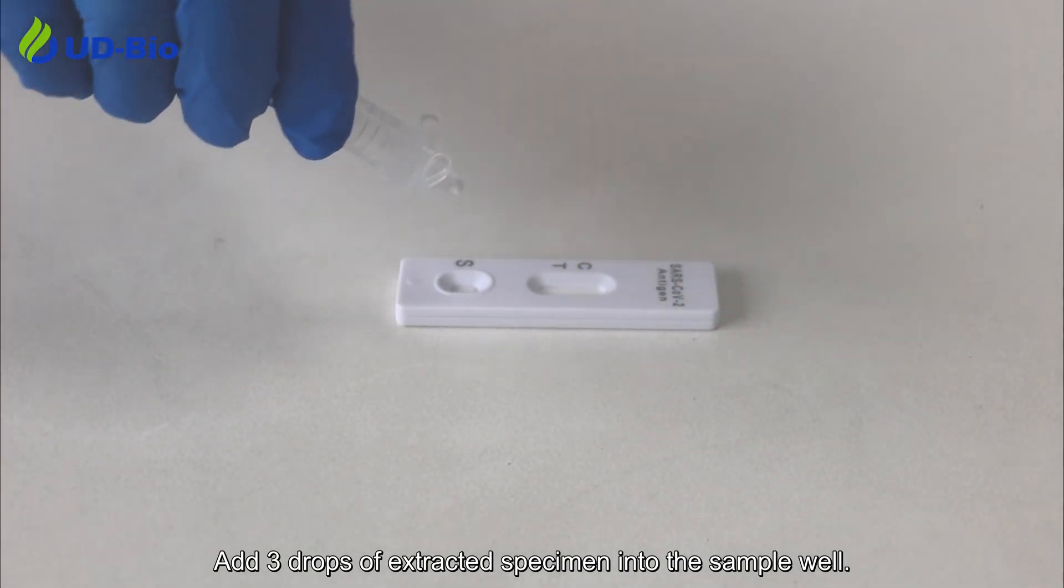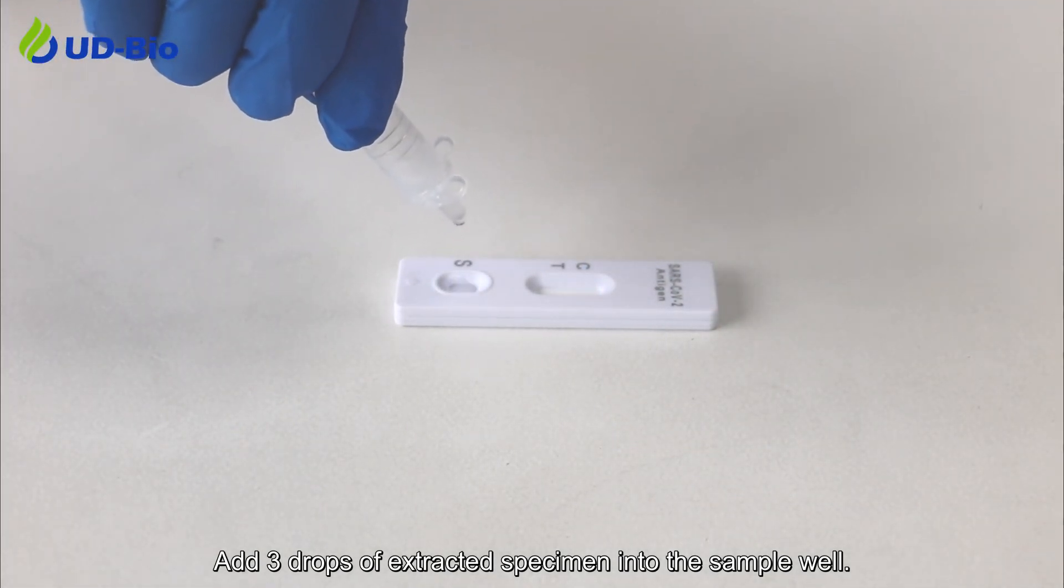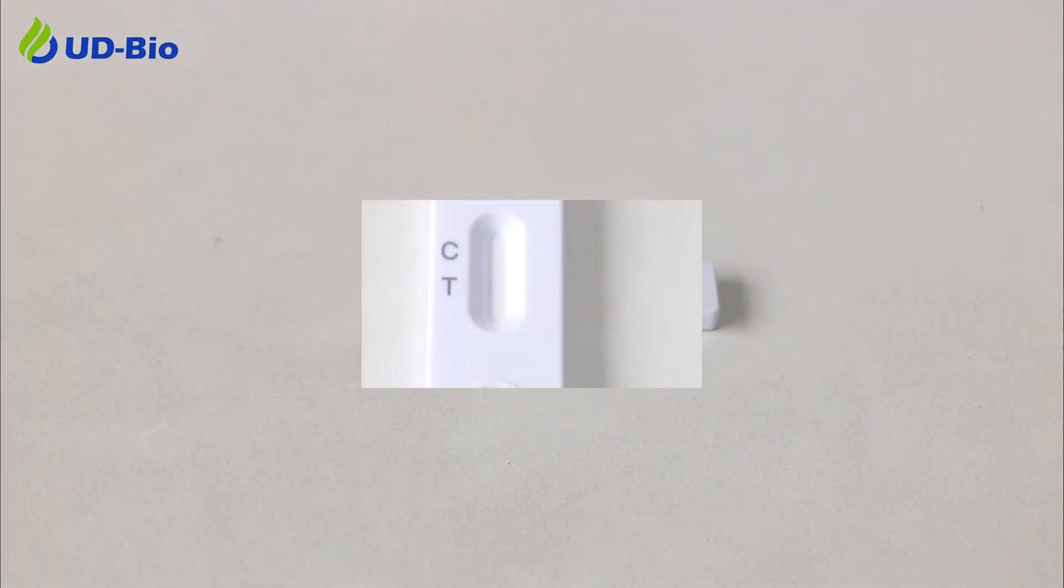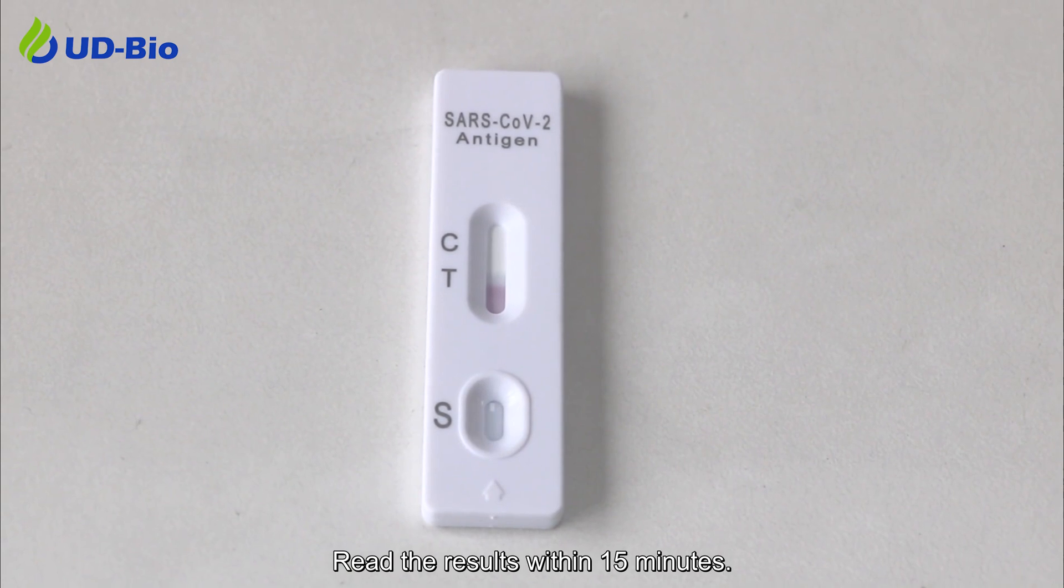Add 3 drops of the extracted specimen into the sample well. Read the results within 15 minutes.